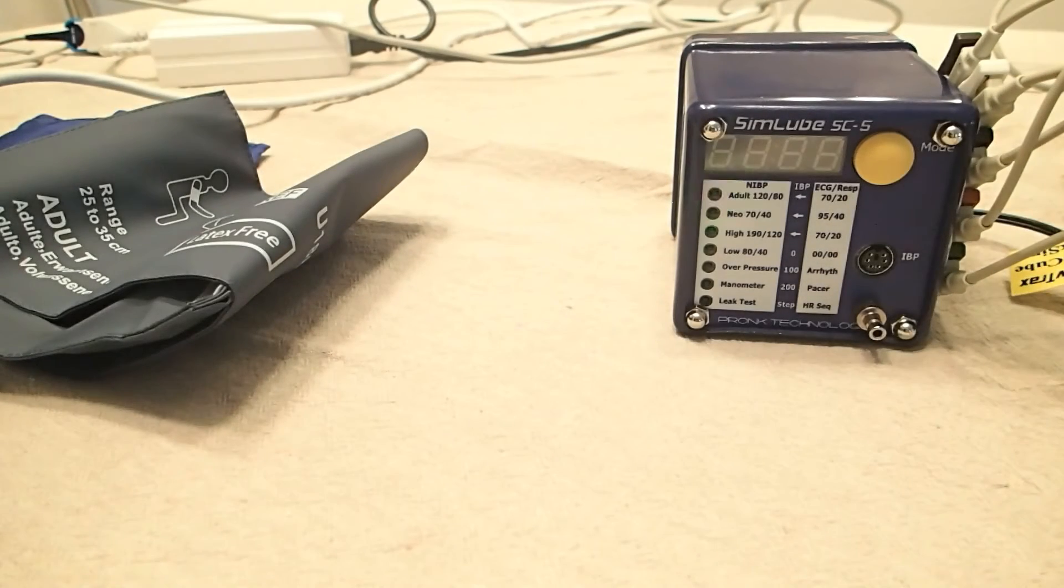In this video, I'm going to show you how to connect the non-invasive blood pressure cuff to the SimCube 5.